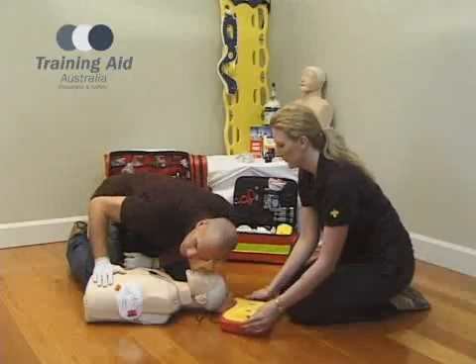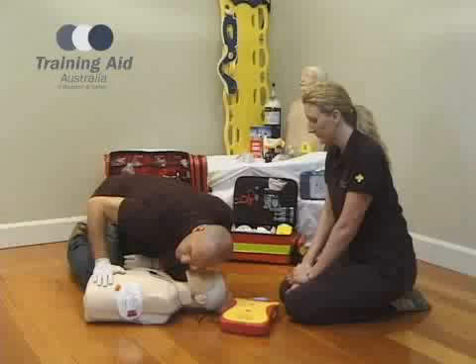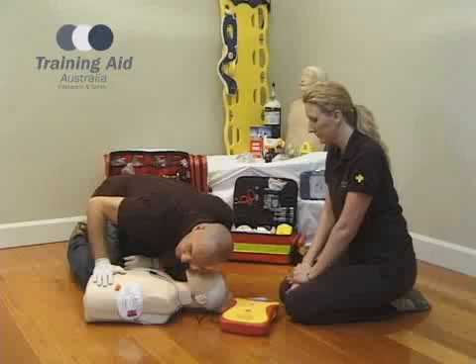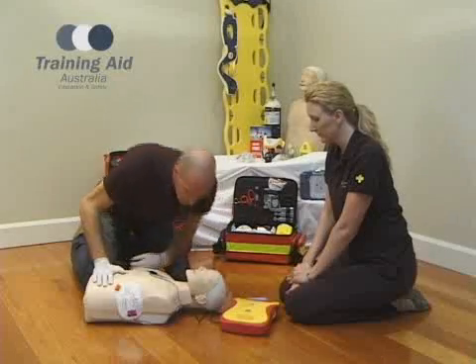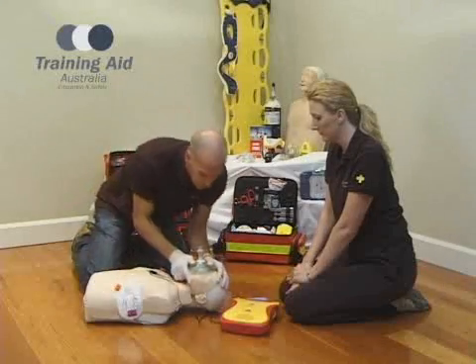Always check the airway and breathing after shocks are delivered, and remember to follow the AED prompts.